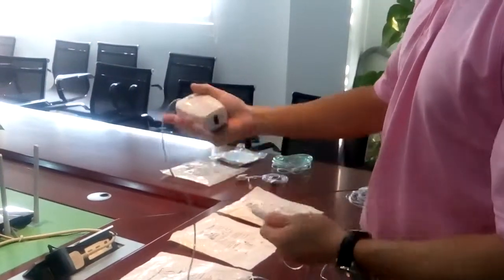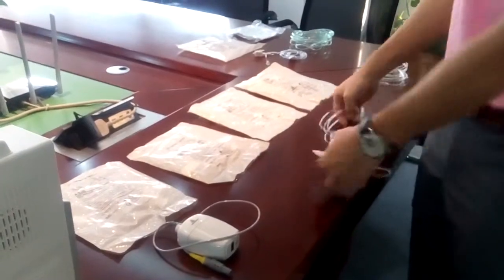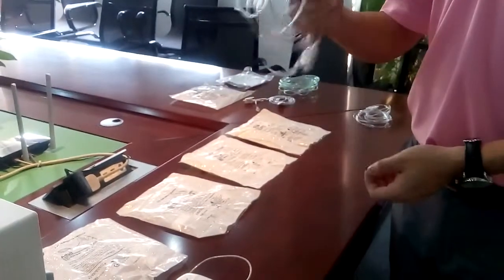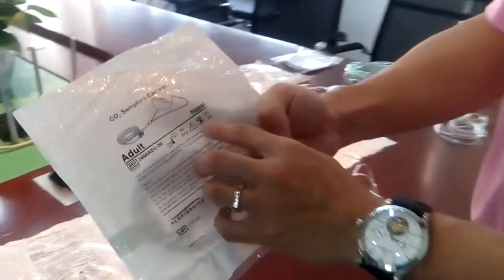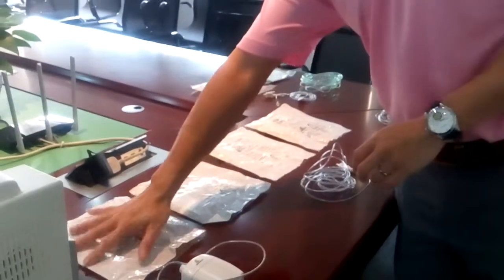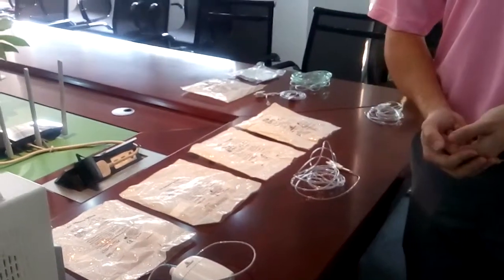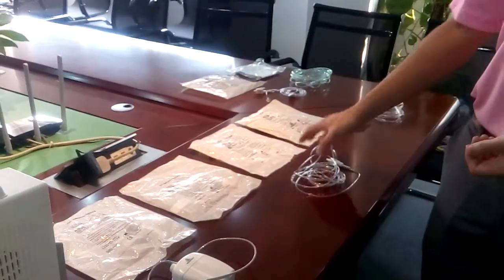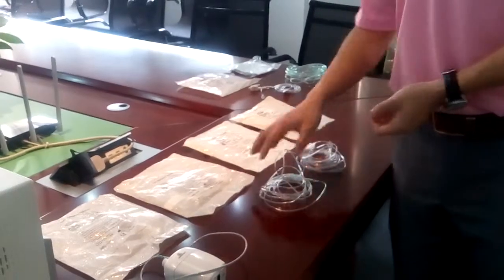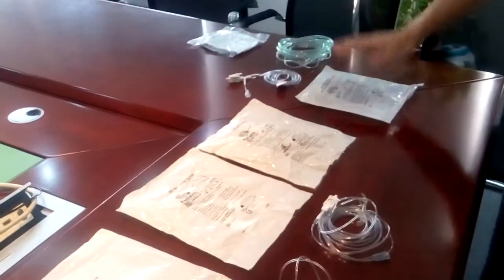After you finish monitoring, since this is a single-patient-use item, you must throw the nasal cannula away. People will ask about the high cost of accessories — yes, it is. But you do have another way to save costs. This is actually the most recommended way we want to tell our distributors and users. We have some other accessories.